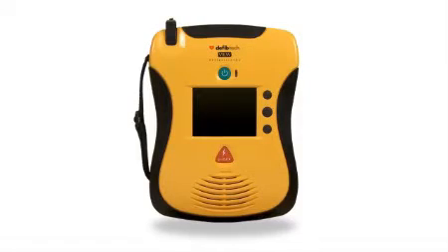Think of it this way. Using a conventional AED is like listening to a football game on the radio. Using the View is like watching the game on TV in high definition, full living color. The difference in clarity and usability is dramatic. Take a look.